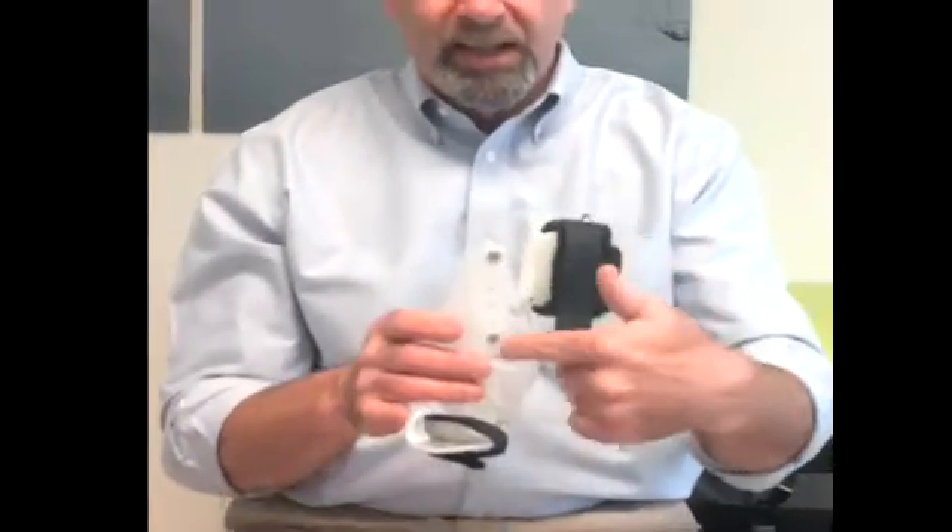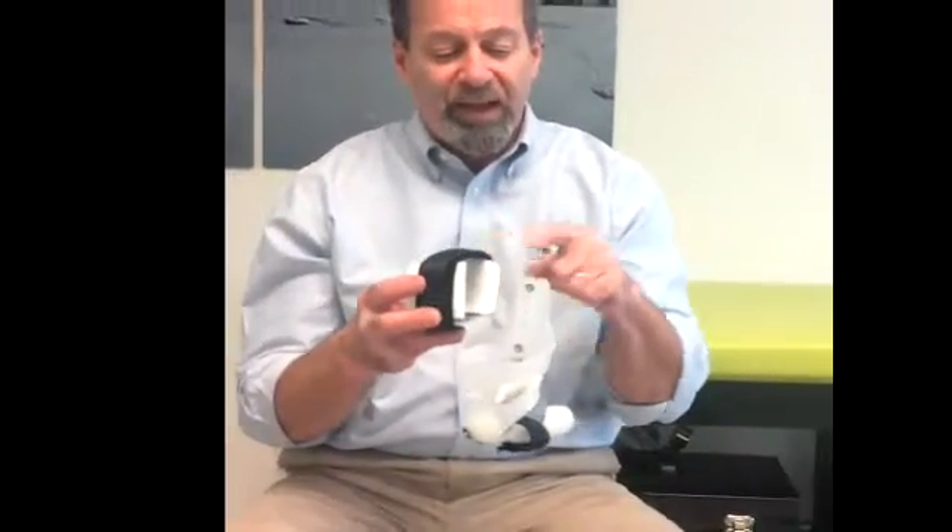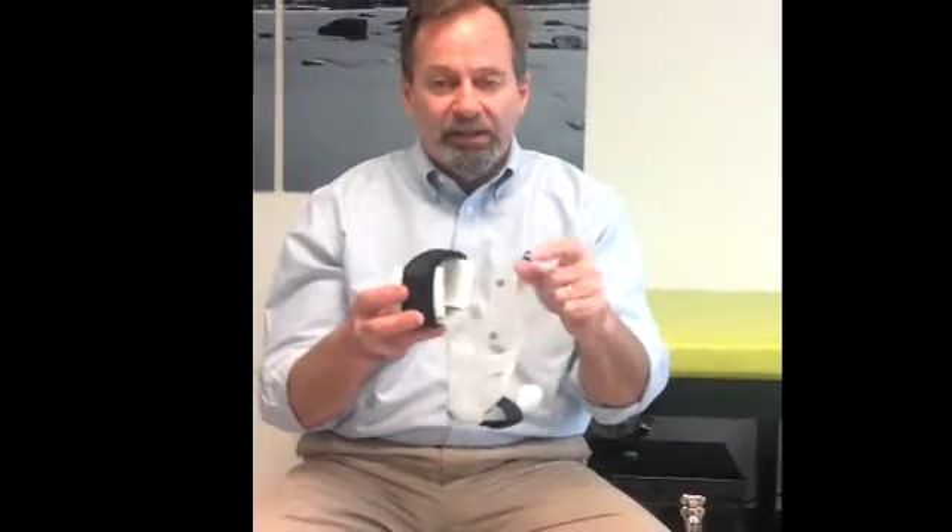When the baby grows skeletally and the tibia starts to lengthen, we disconnect the two attachment points. There's a separate piece for the thigh that's allowed to slip relative to the spiral piece, and it can be simply reattached in half-inch increments so we can continue to lengthen the brace for tibial growth. This means the brace continues to fit with minor adjustments throughout — typically four to five months of growth for boys and six to eight months for girls.